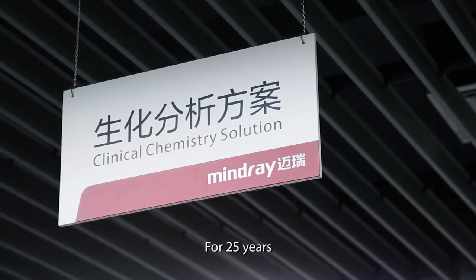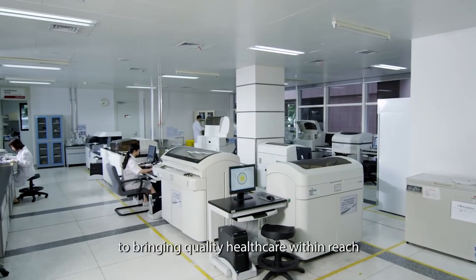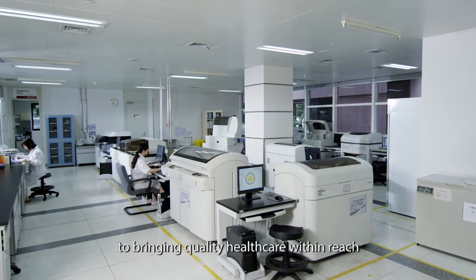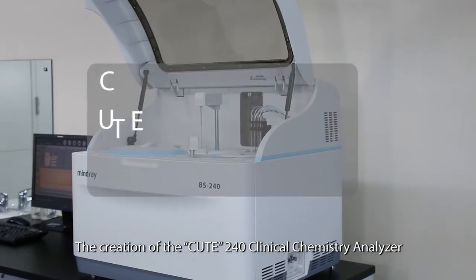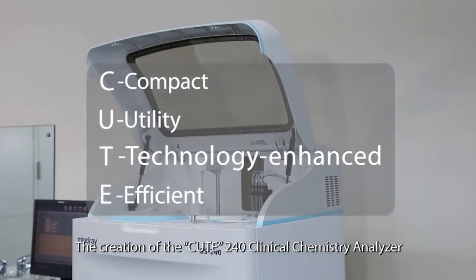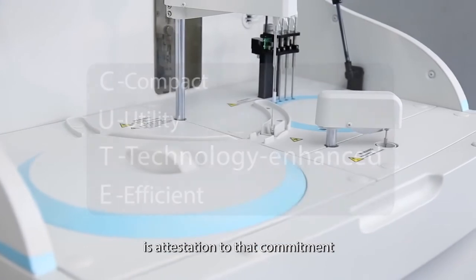For 25 years, Mindray has been dedicated to bringing quality healthcare within reach. The creation of the BS240 Clinical Chemistry Analyzer is attestation to that commitment.